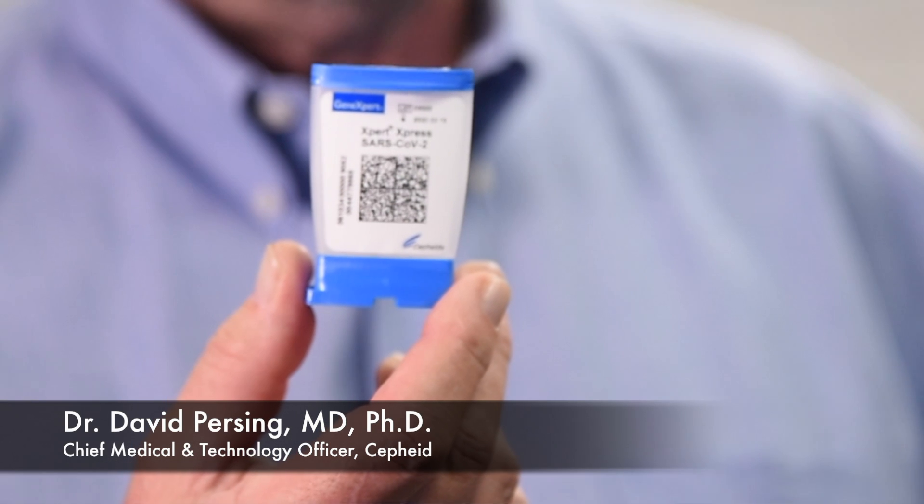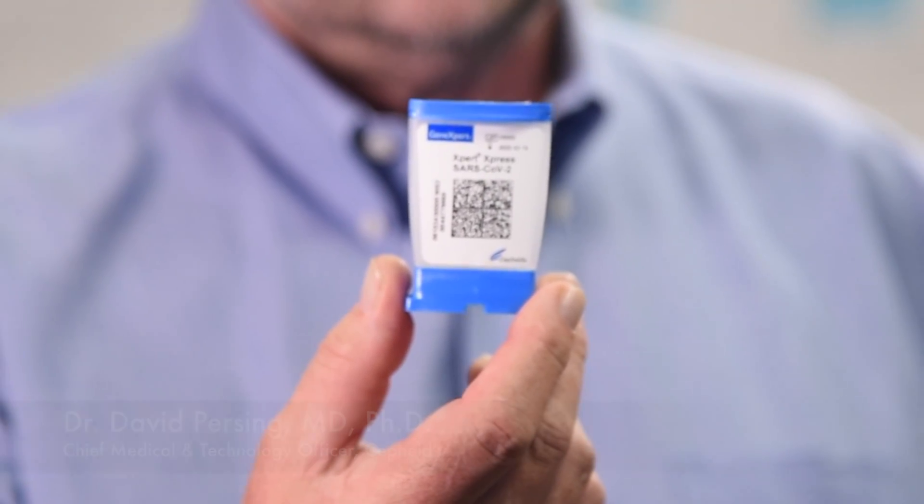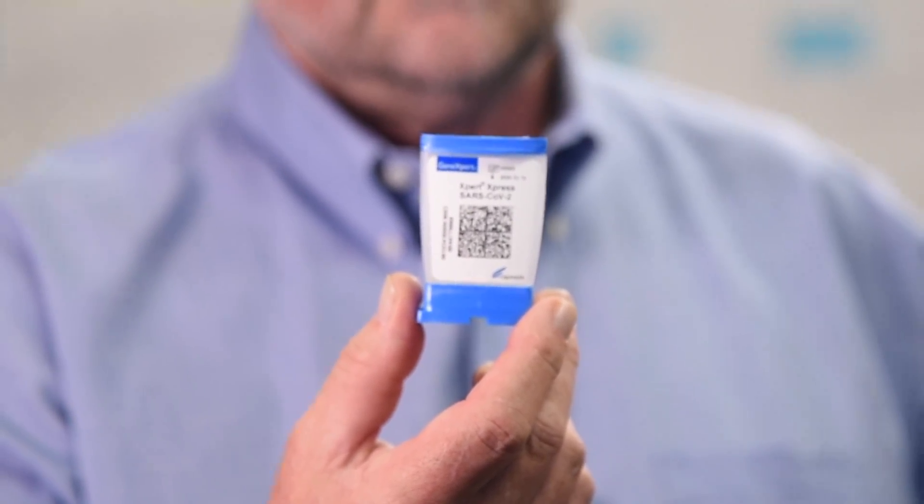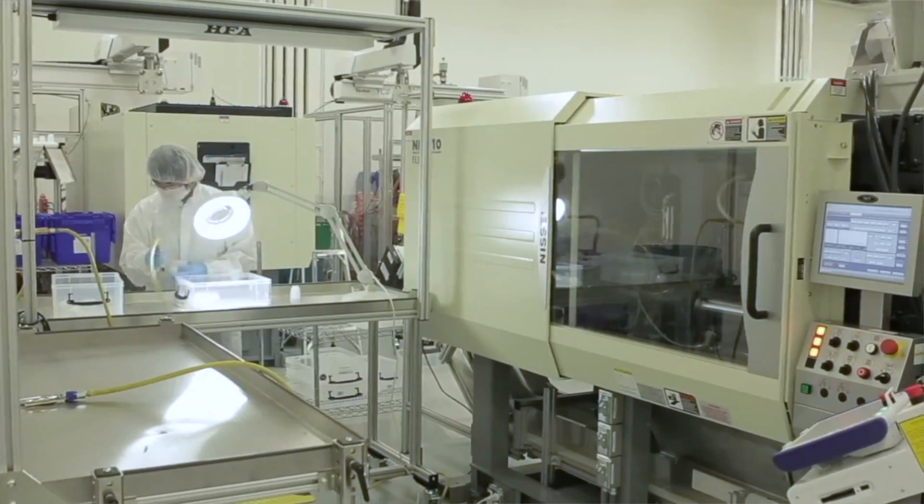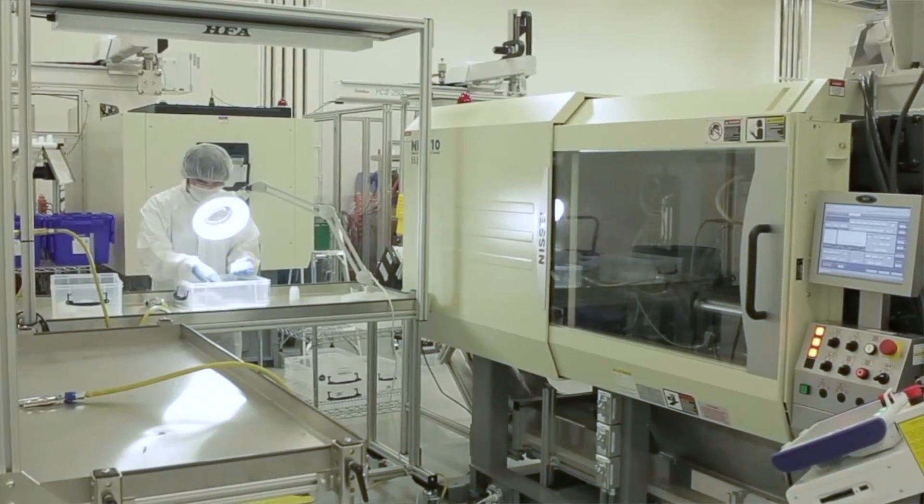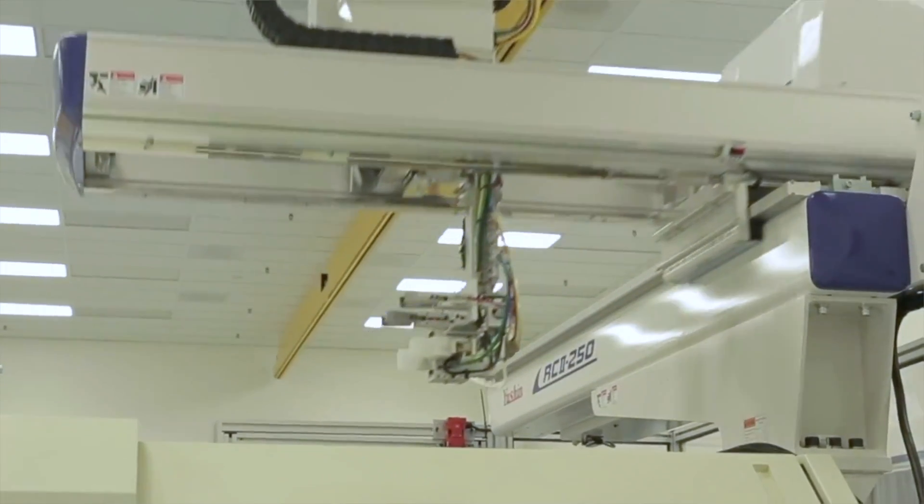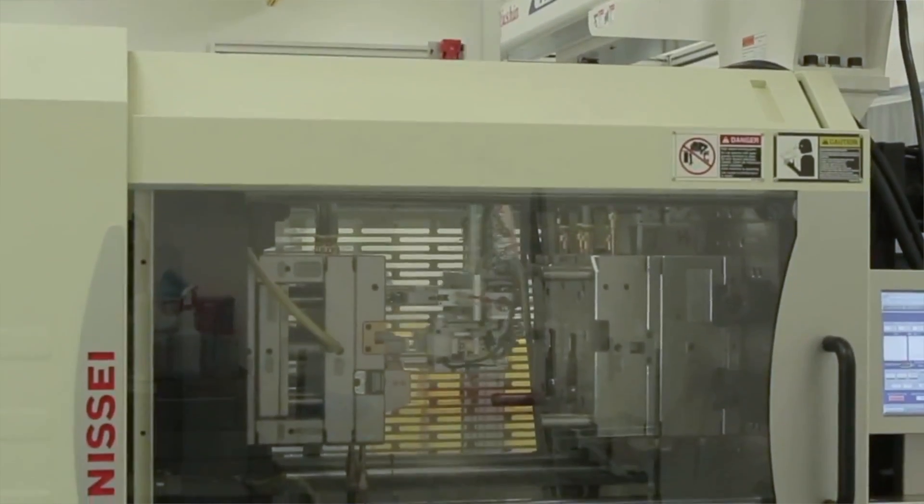This cartridge is manufactured in a couple different places. The cartridge body, the white plastic, the foot, and the lid are manufactured primarily at our production facility in Lodi, California.